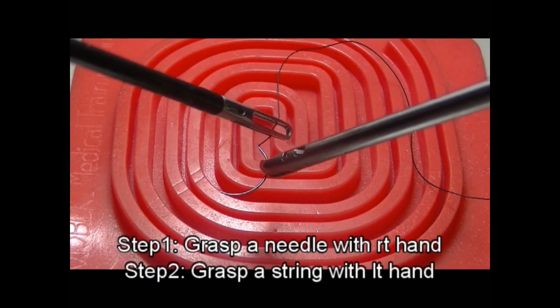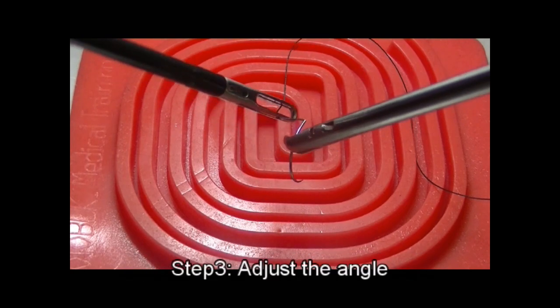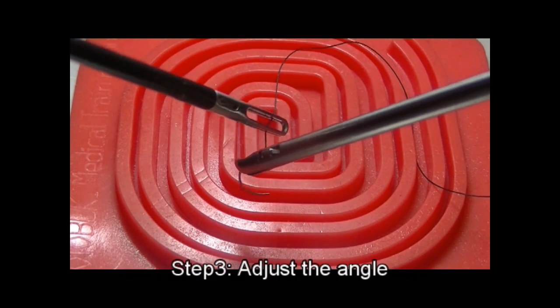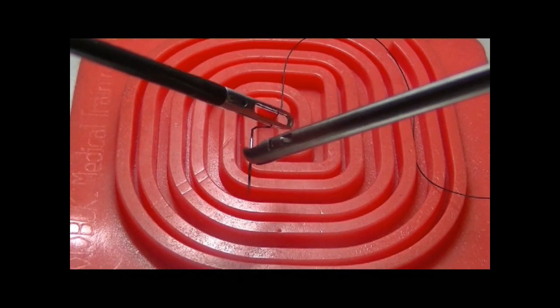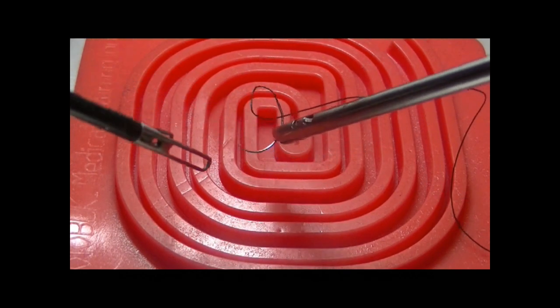First, you should grasp a needle with your right hand directly. Then grasp the string with your left hand and adjust the angle. The soft touching sensation of the right hand needle driver is important.